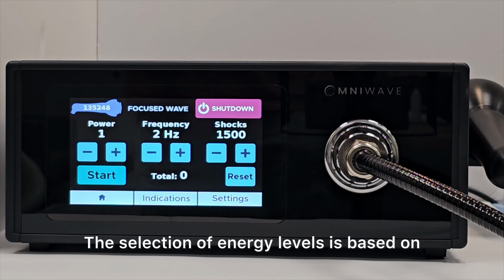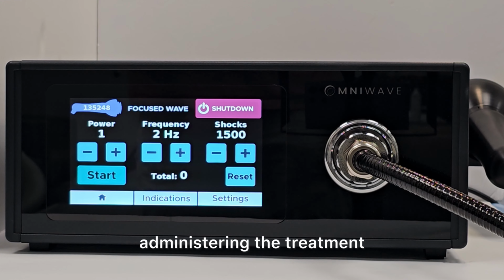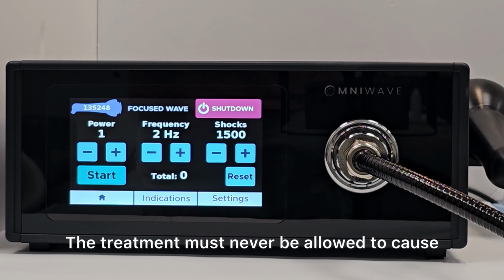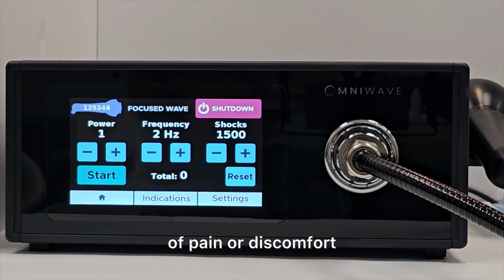The selection of energy levels is based on the medical opinion of the healthcare professional administering the treatment. The treatment must never be allowed to cause the patient to experience any excessive amount of pain or discomfort.